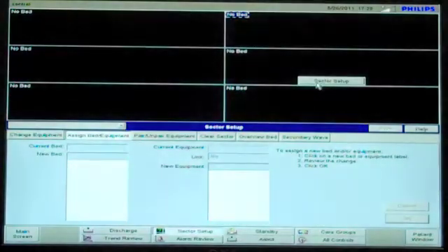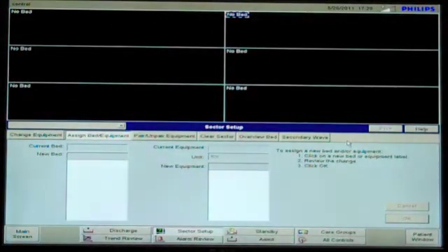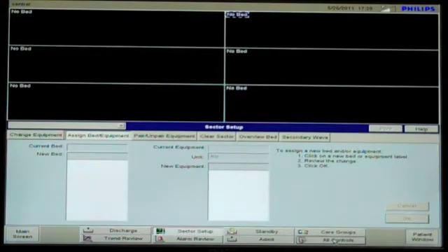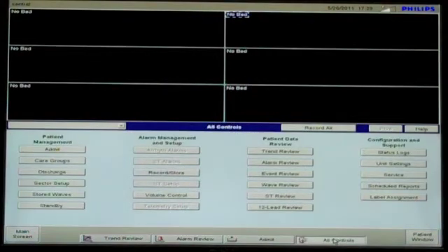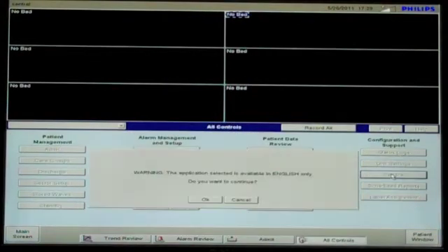Once it is running, click Sector Setup in any of the sectors. Click All Controls, click Service, then OK.